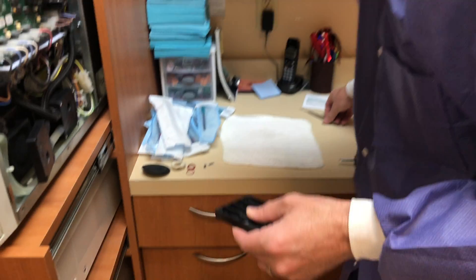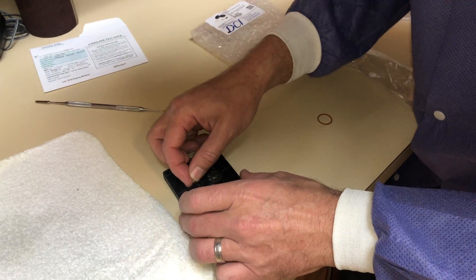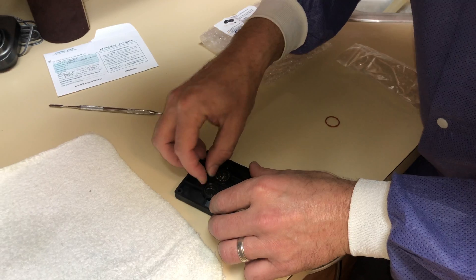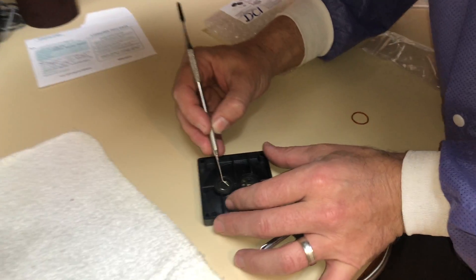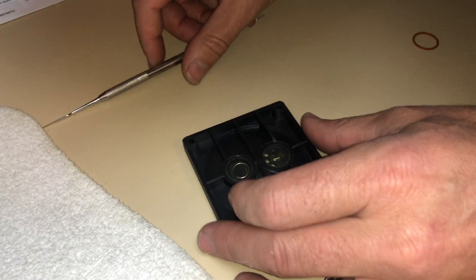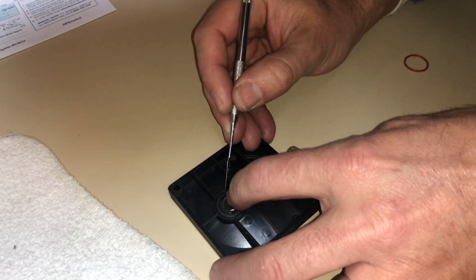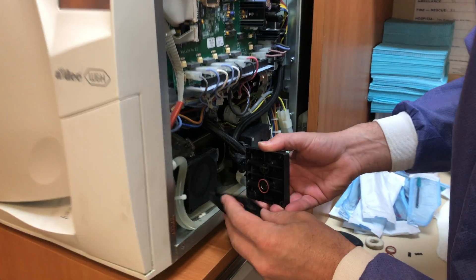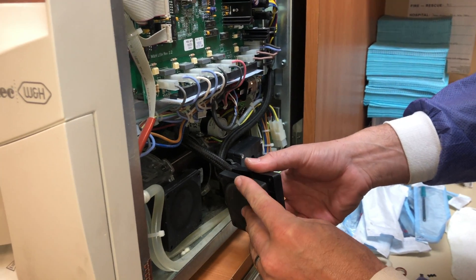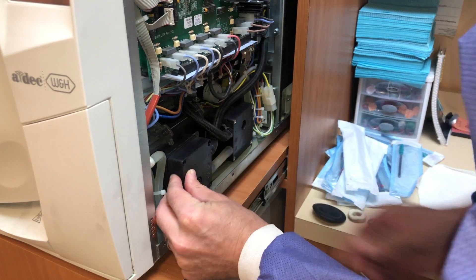Now I'm going to look for my clip. So we'll put in our new membrane and put the clip back in. I spent a while on the trial run trying to see what's the best way to get it in. I think the best way is to put the open end in first and then just push with your finger. I got the clip in and you put the new O-ring on. Then you just reassemble — the O-ring's got to go opposite the non-O-ring part. And then we can just put the screws in and reassemble.